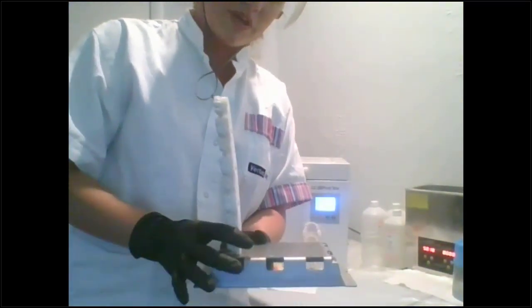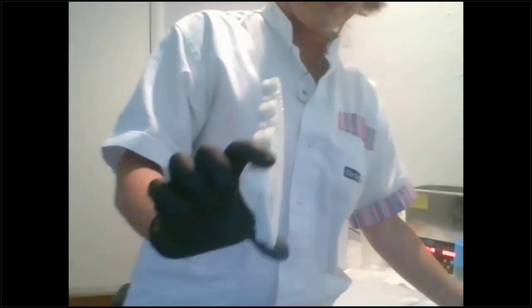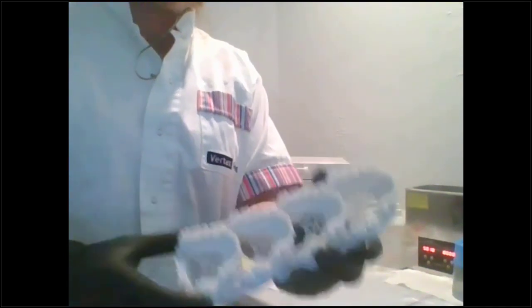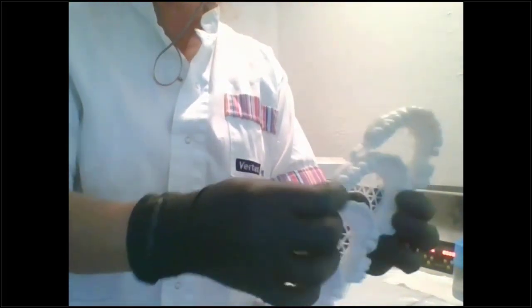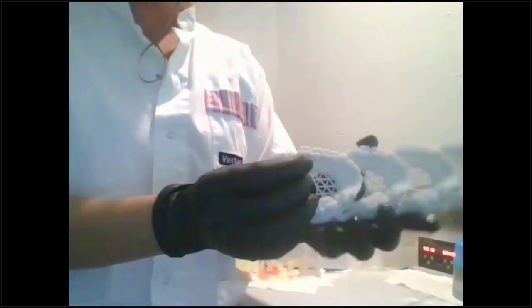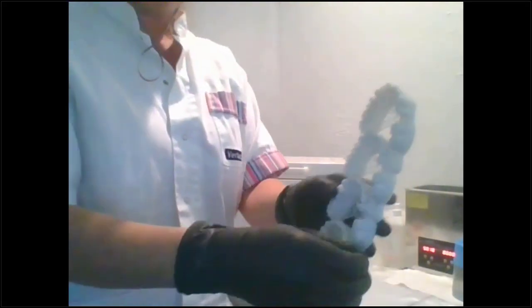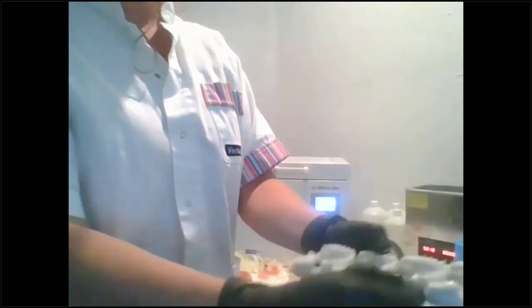But you can see how tall it is, and basically you can pop these off, and so you can see the feet. Okay, and then you'll just pull off. Actually, here's a couple of the supports that I did not pull off. You can just pull those right off, right when you get them out. I like to take all of my supports off right when I pull them out of the printer.